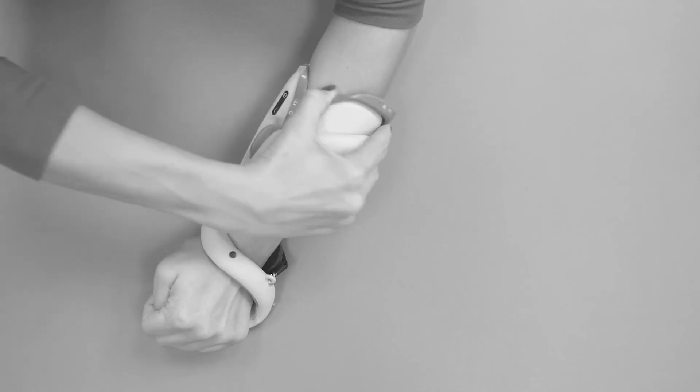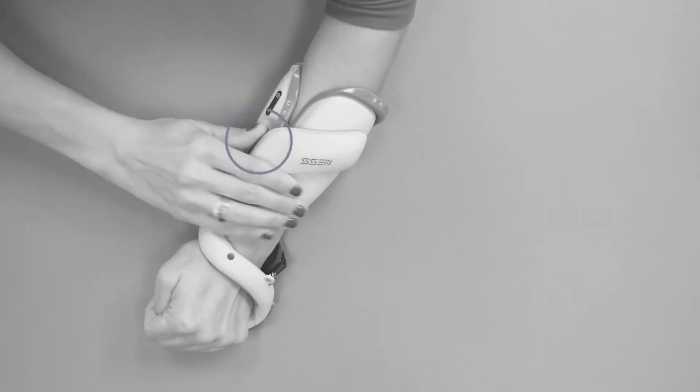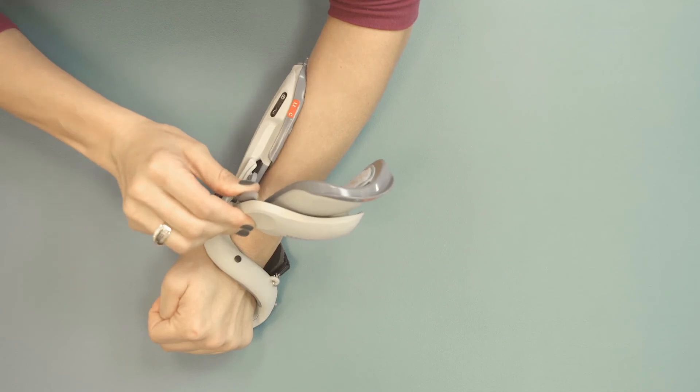When opening the extensor wing, do not force it. Don't forget to press the release button and it will open easily.